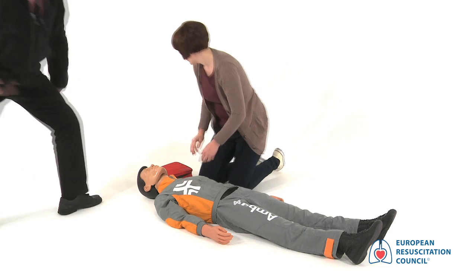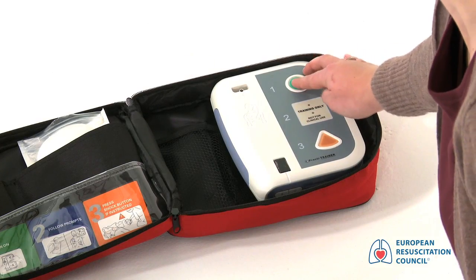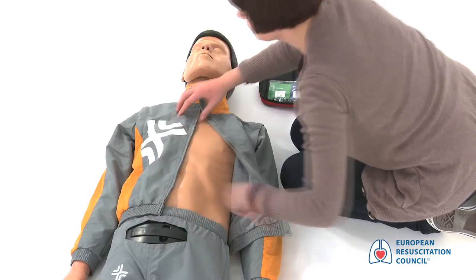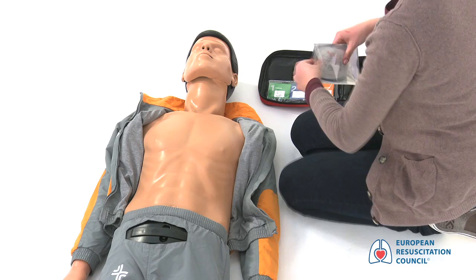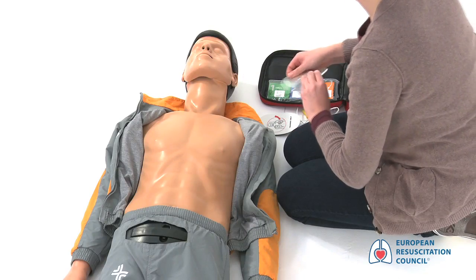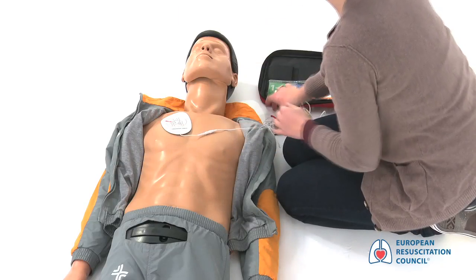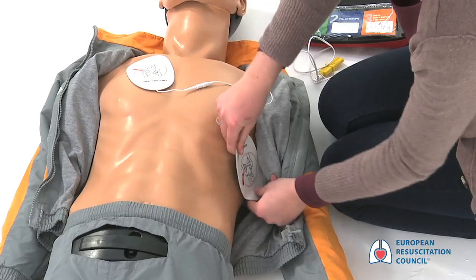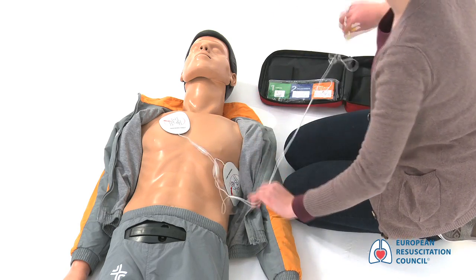When the AED arrives, immediately switch it on and follow the voice prompts. Apply pads to patient's bare chest. Remove the victim's clothes to expose their bare chest. Remove the pads from the package, looking carefully at the pictures shown on each pad. Peel off the first pad and place exactly as shown in the picture on the pad. Peel off the second pad and place exactly as shown. If needed, connect the pads connector to the AED.